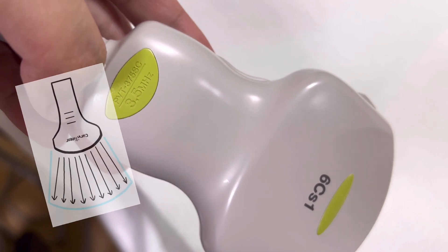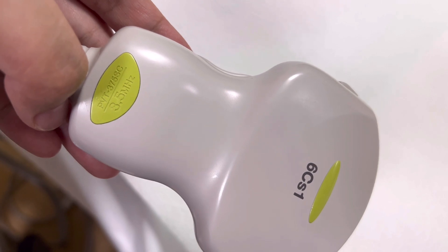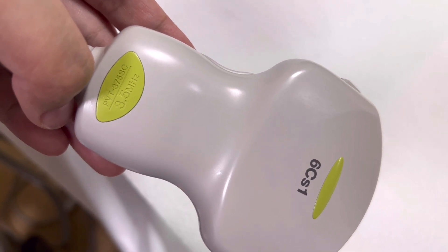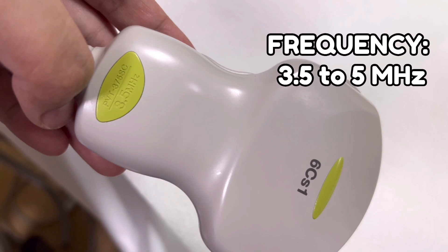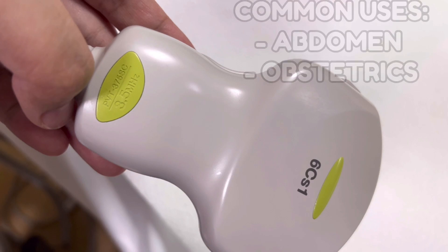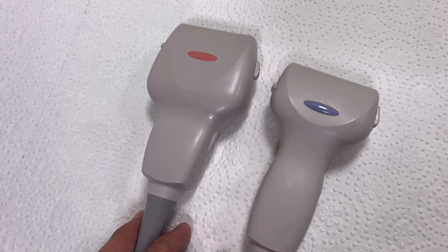These probes make a lot of contact with the skin surface, and the ultrasound beam spreads out inside the patient to cover more of the parts of interest. The frequency usually ranges from 3.5 to 5 megahertz, which is why these probes are mostly used for imaging deeper structures like the abdomen and for obstetrics.